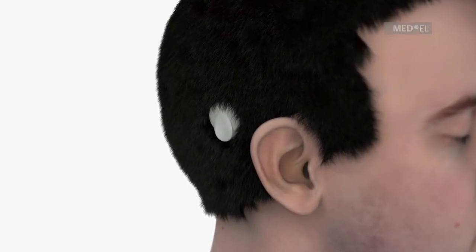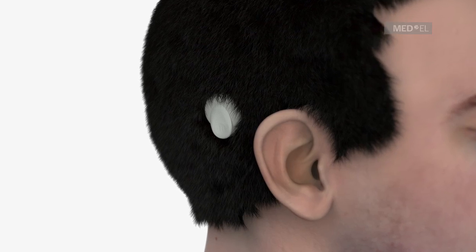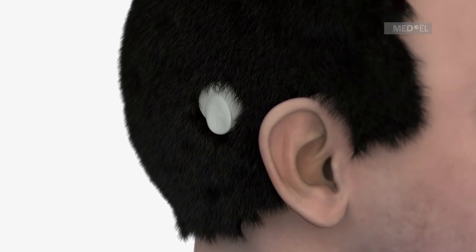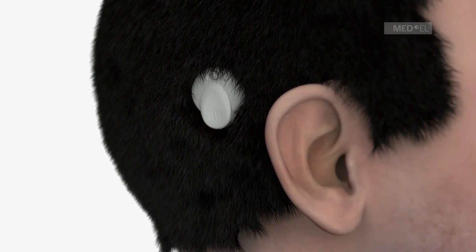The BoneBridge is a partially implantable hearing system. It's suitable for persons with conductive and mixed hearing loss.